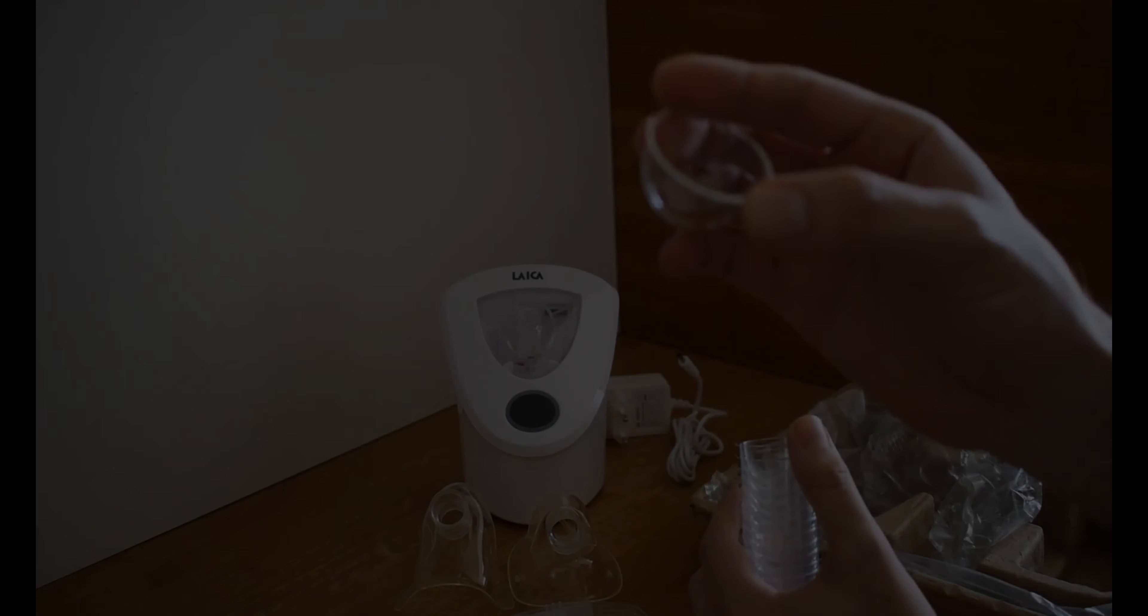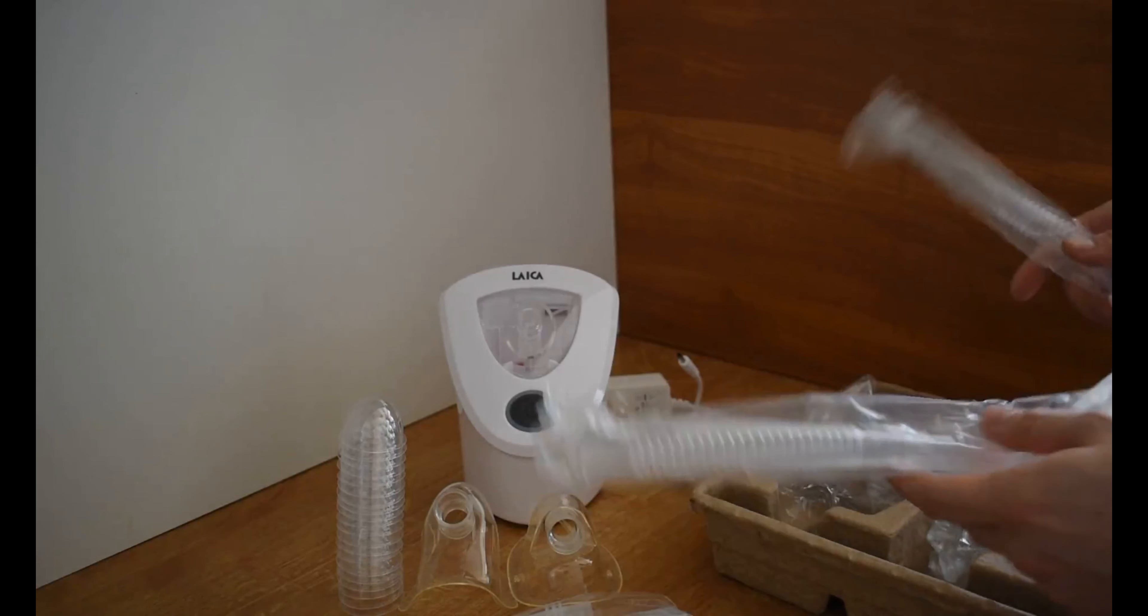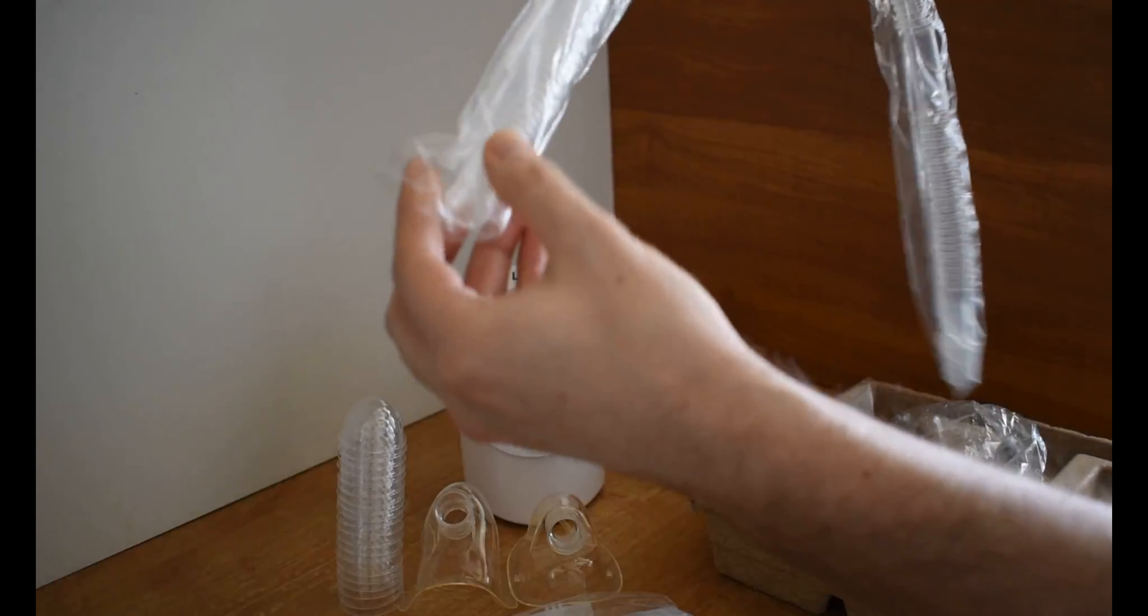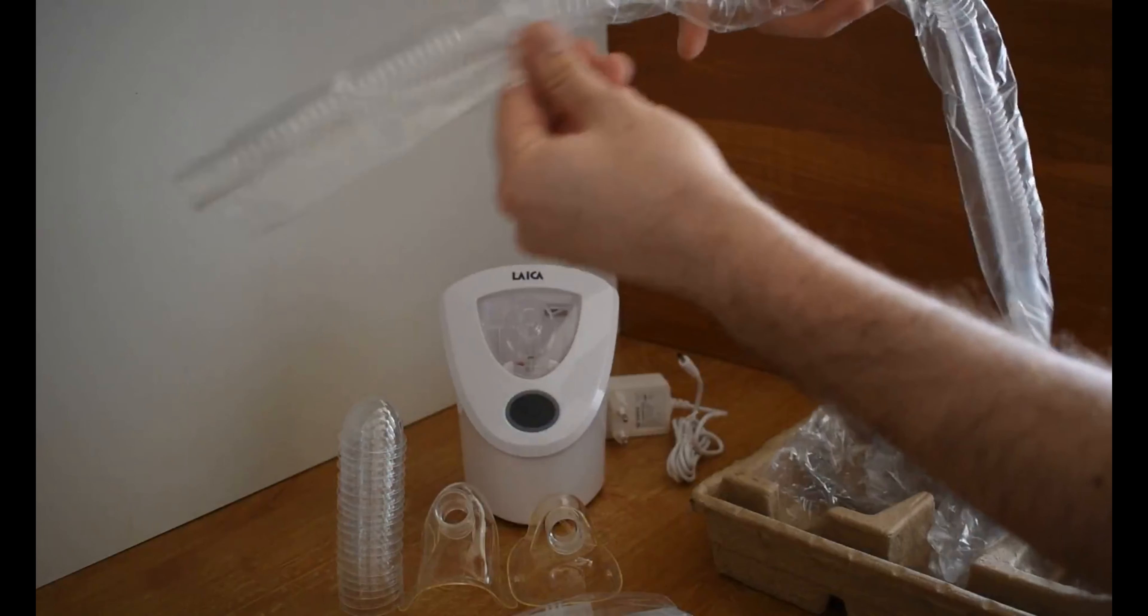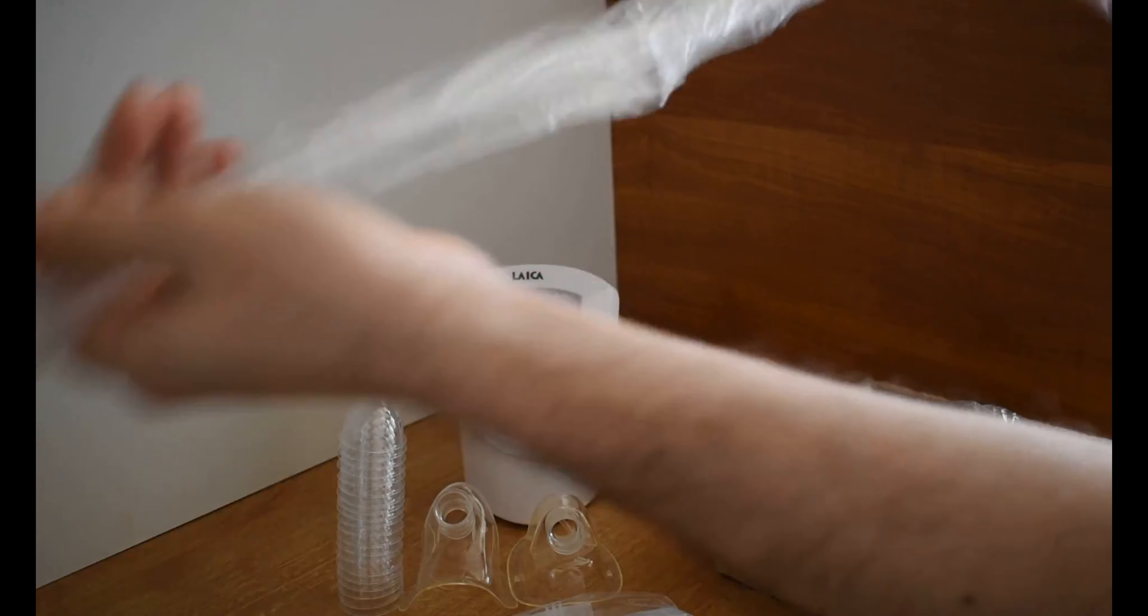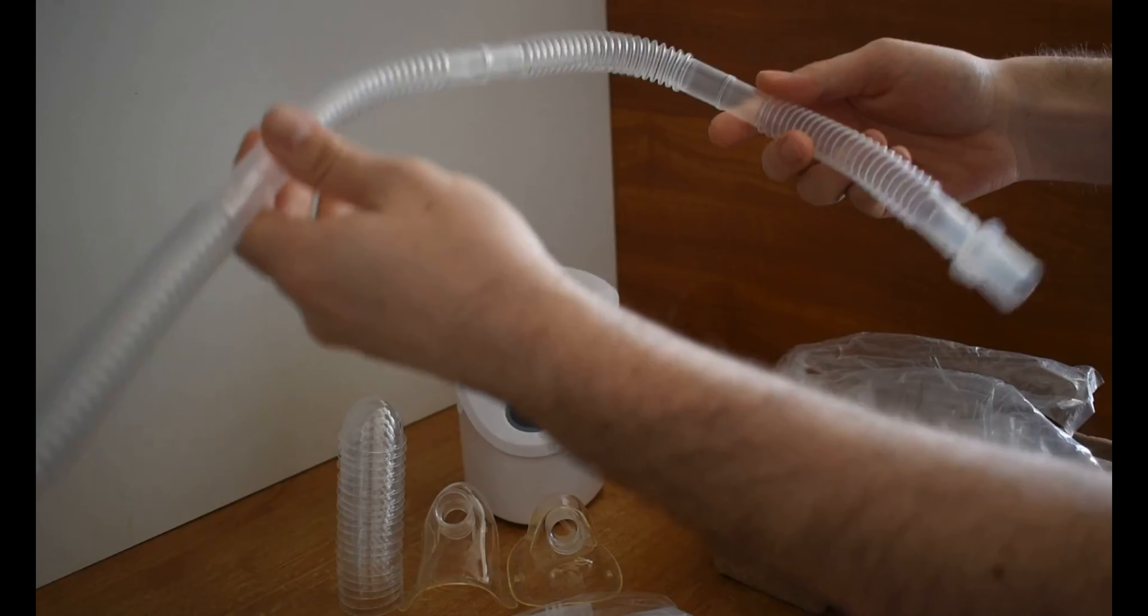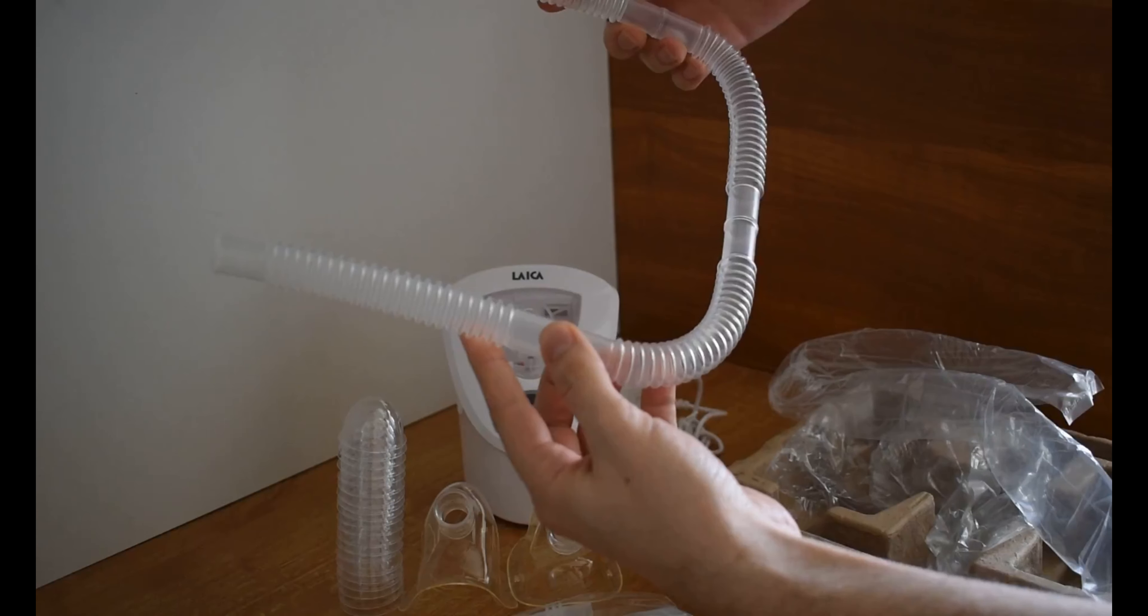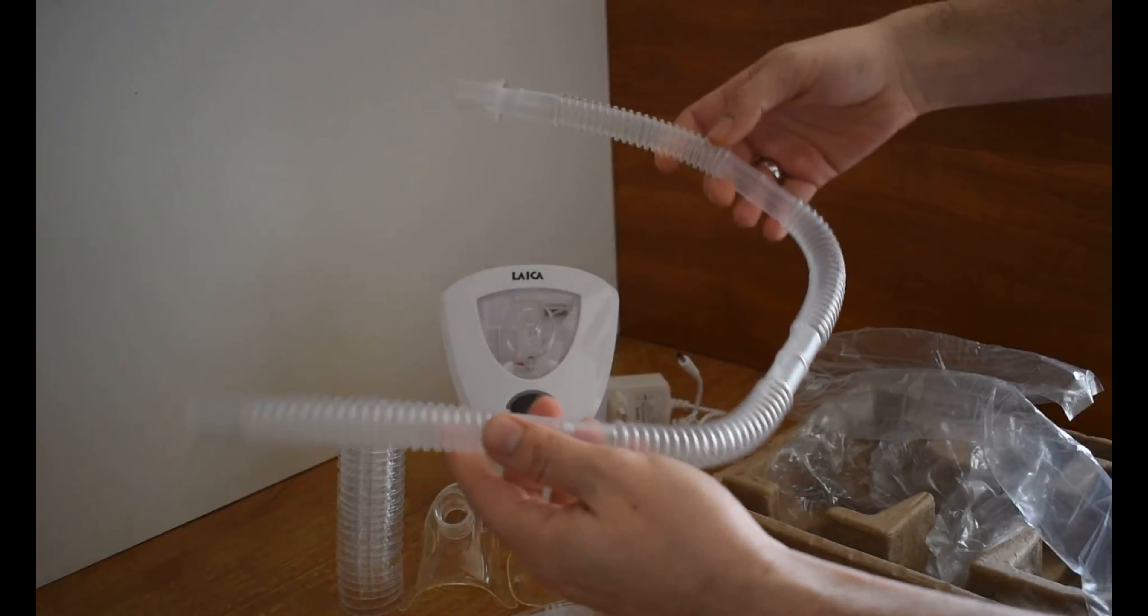So let's review the next item which is the air tube. It's a pretty big one, well packed again. It's a soft plastic which allows us also the length itself to move around as kids have a hard time to keep them in the same place. Left side is plugged on the mask and the right side of the tube is plugged to the device itself.